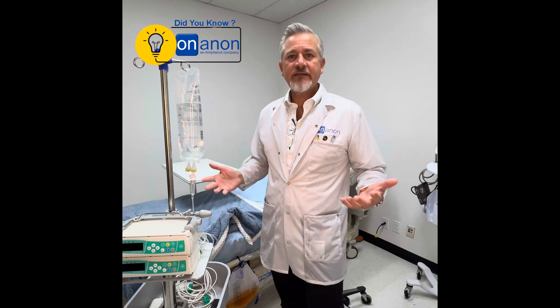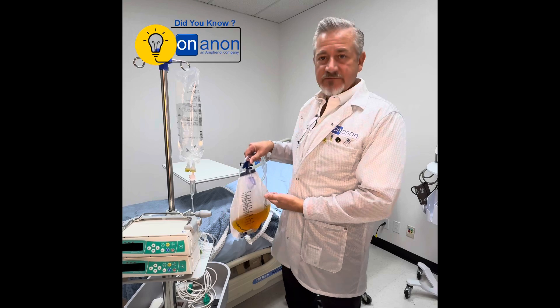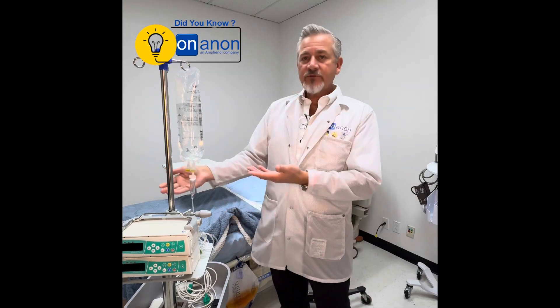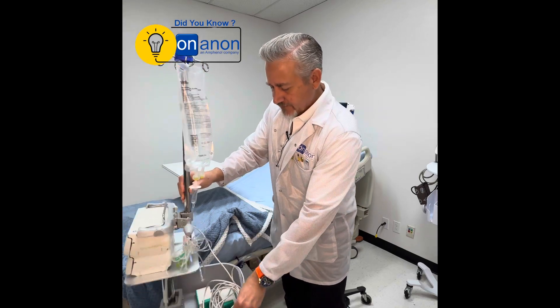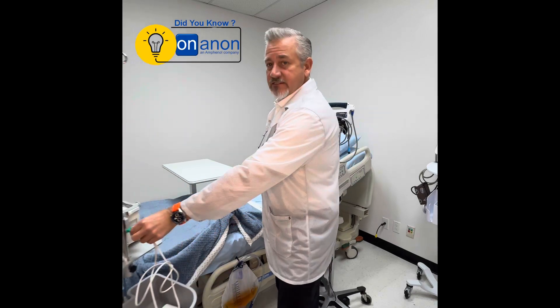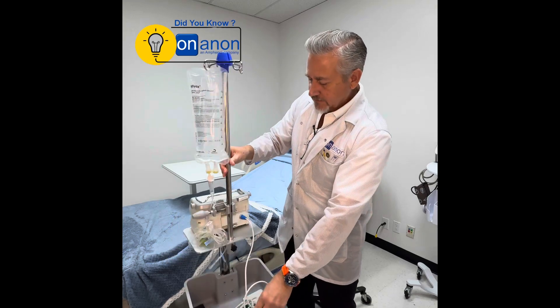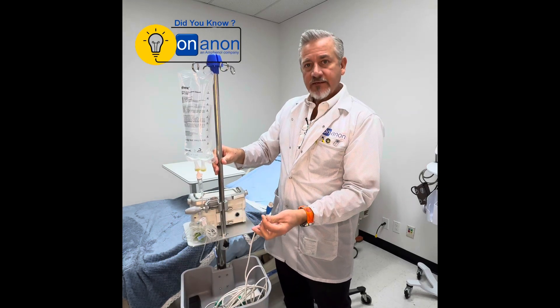It's rough enough being in a hospital, but when your pee bag is full and you just want to get up and go use the bathroom, you have to unplug your syringe pump. But in order to do that, you have to deal with these very cumbersome connectors, and plugging and unplugging something that's on wheels is not the easiest thing to do. But we need to convince more OEMs to incorporate MagConnect in their assemblies.